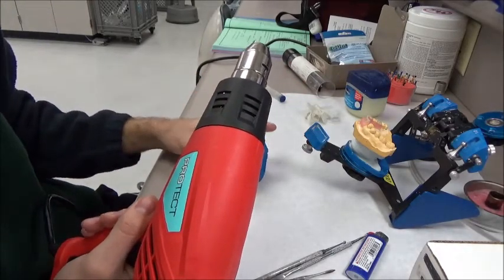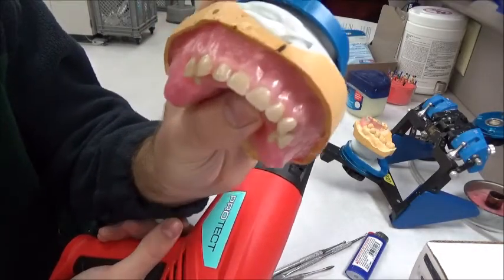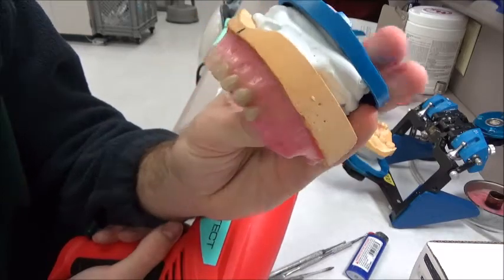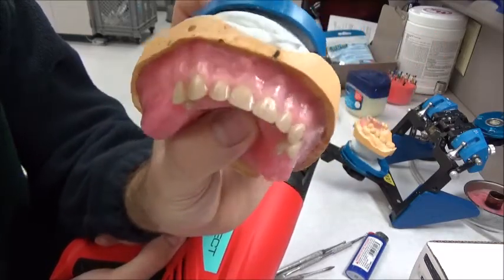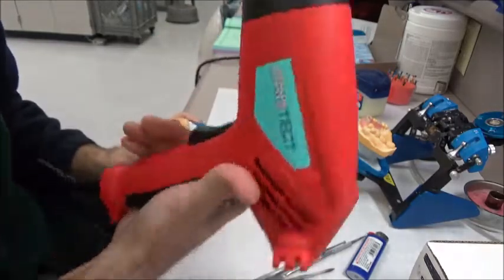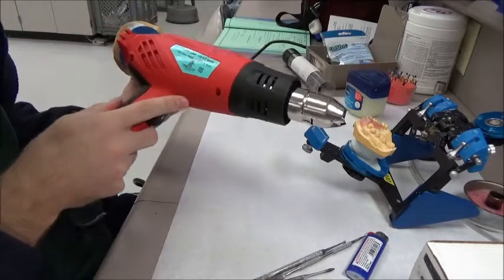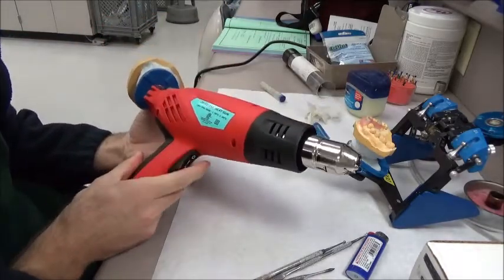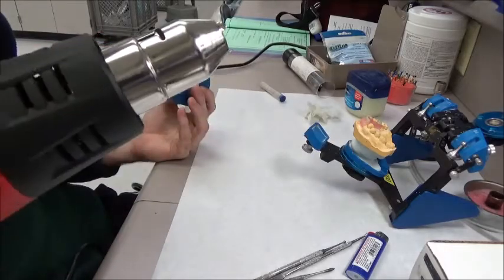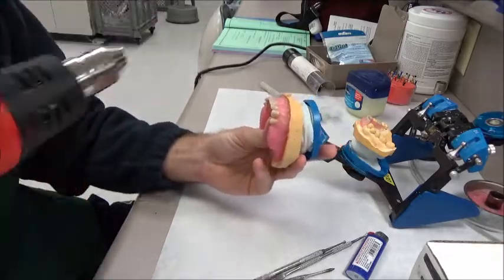Here's one example. This is for festooning dentures. We've got a denture that's pretty well-shaped, but I want to festoon and get it all nice and shiny in the anterior region. This specific model has two heat outputs — 350 degrees is one and 550 is two. I'll just turn it on one. It takes about five seconds to heat up.